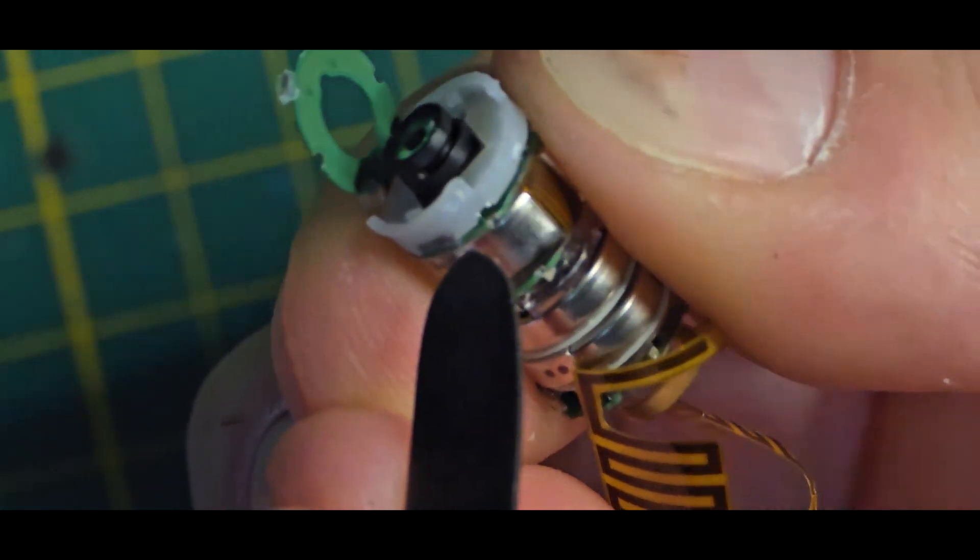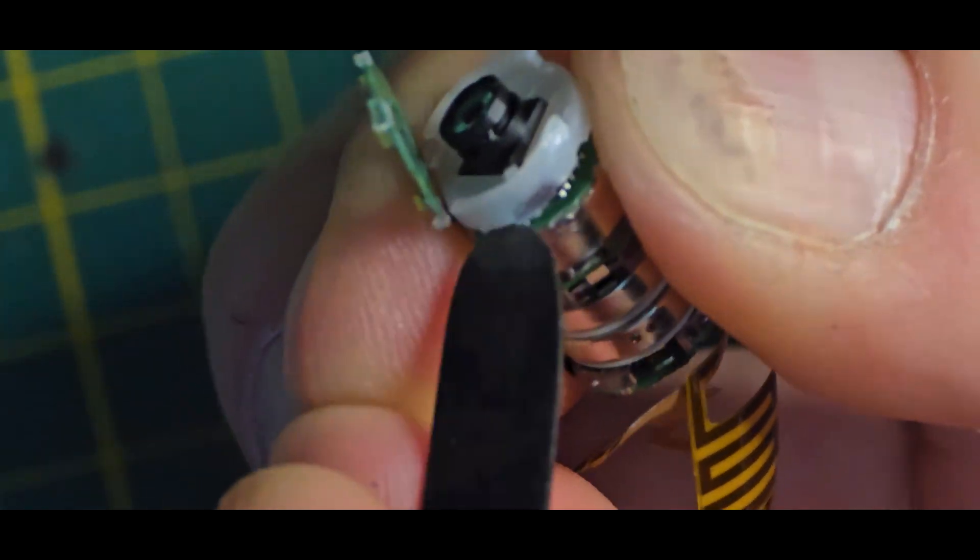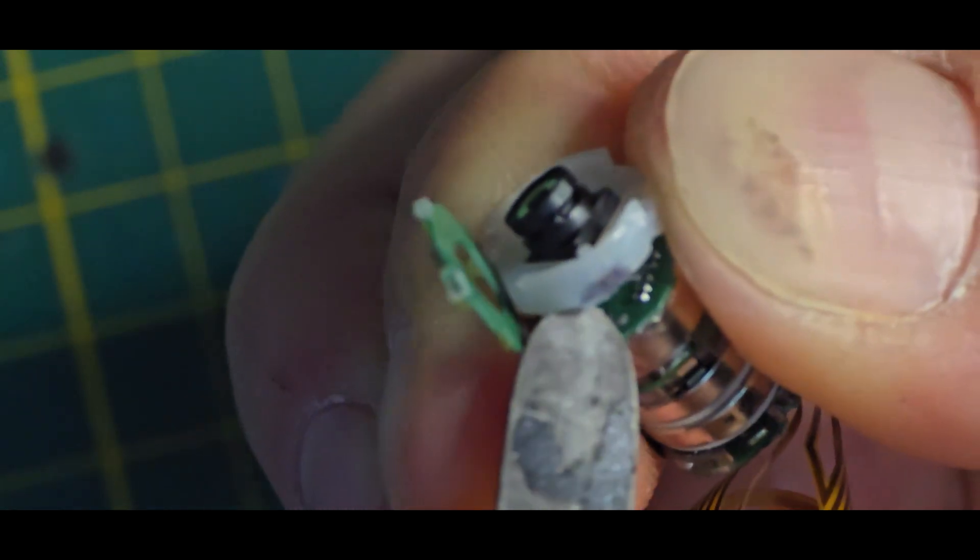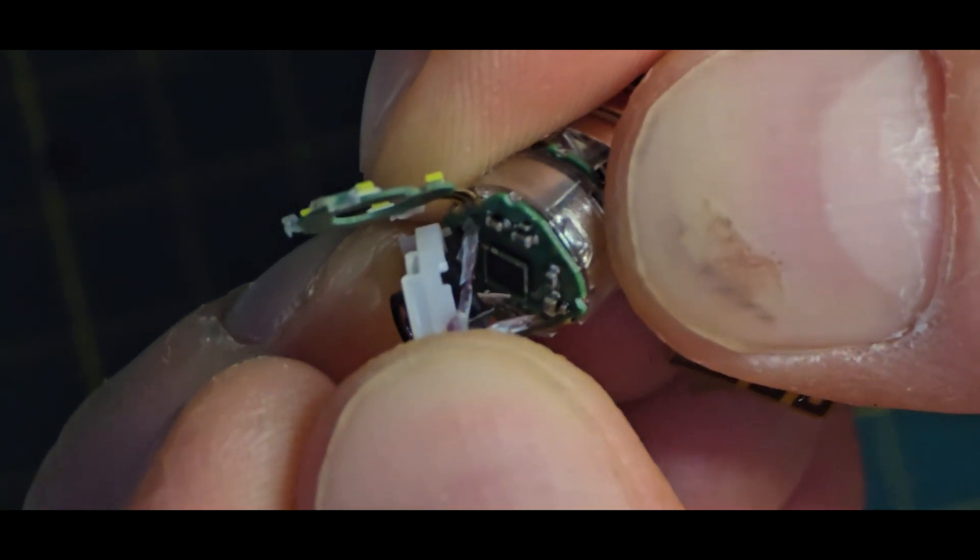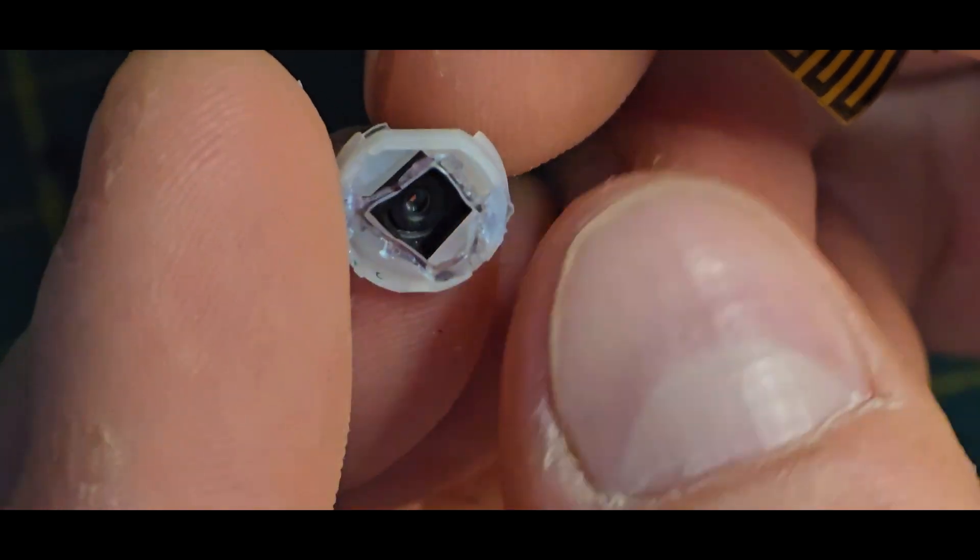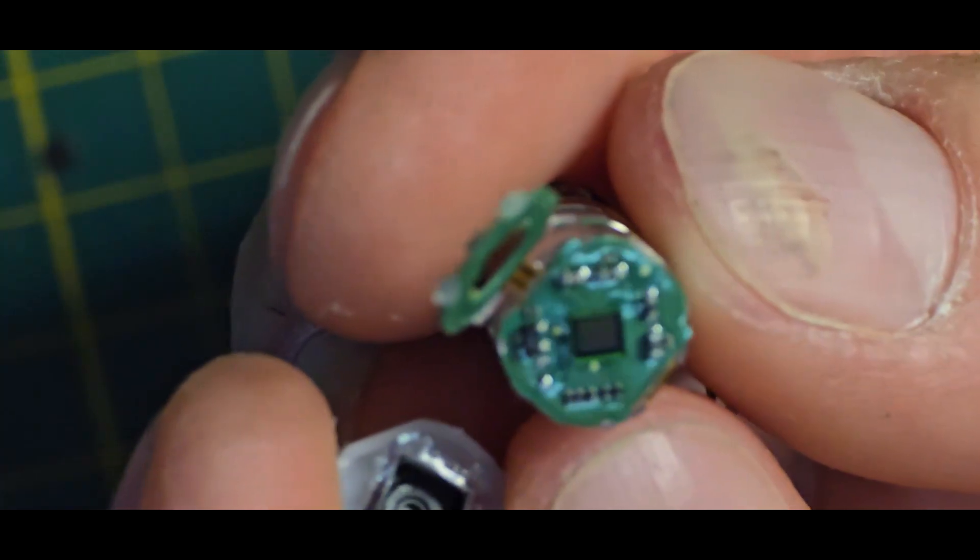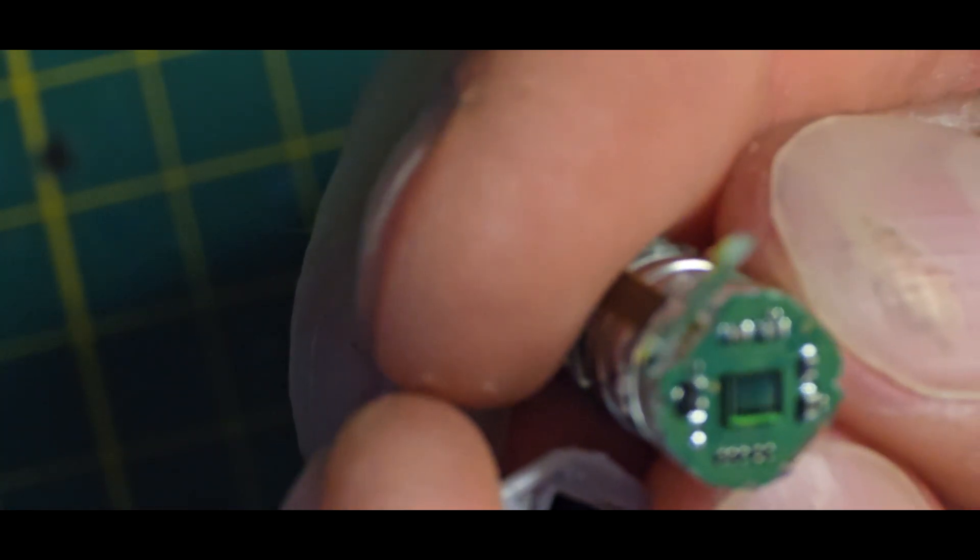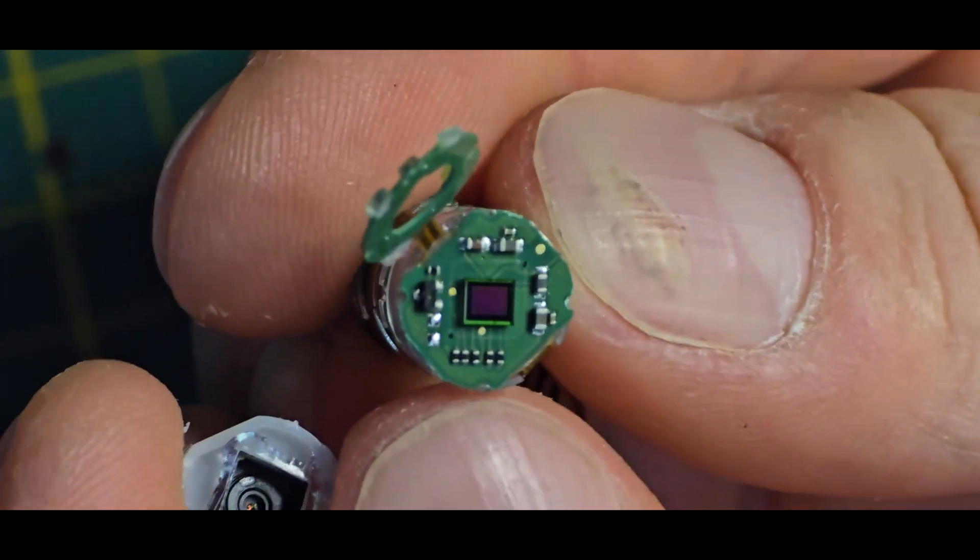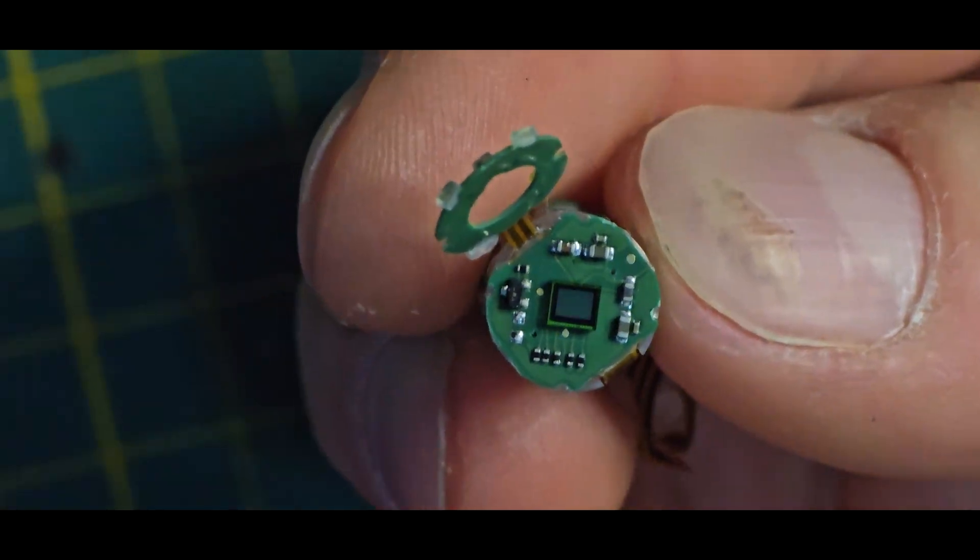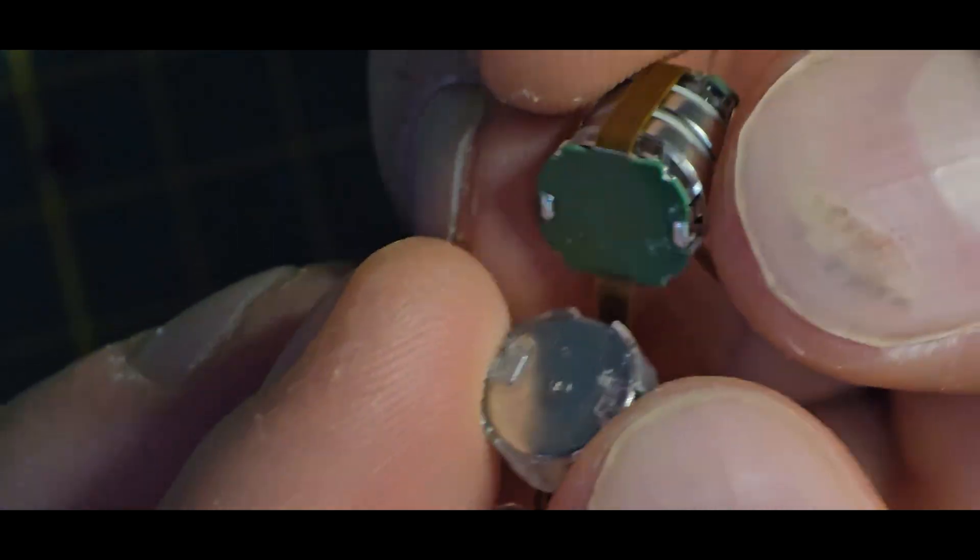So let's try it anyway to really know what is inside. Let's try to lift it away. And yeah so we can see the lens itself is removed. And here we still have the image sensor. And it looks like it is fully intact. Let's just keep it that way for now. And also try to lift off this PCB again.